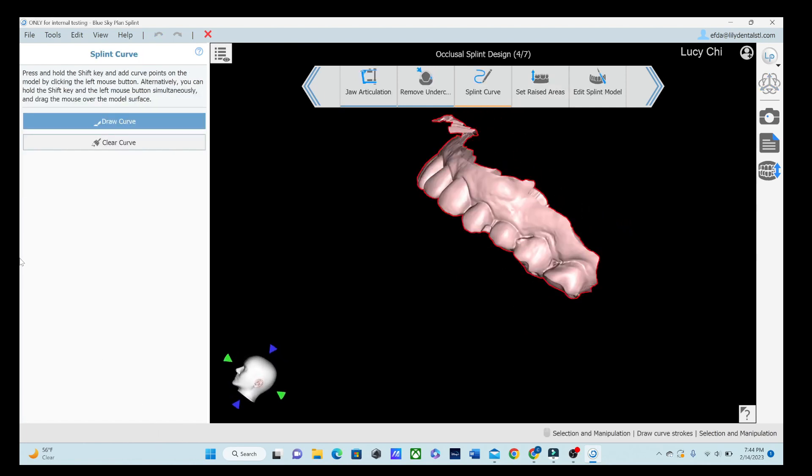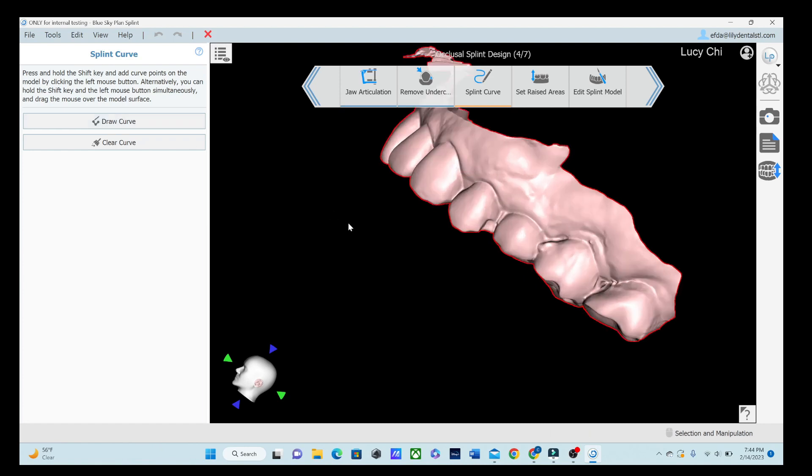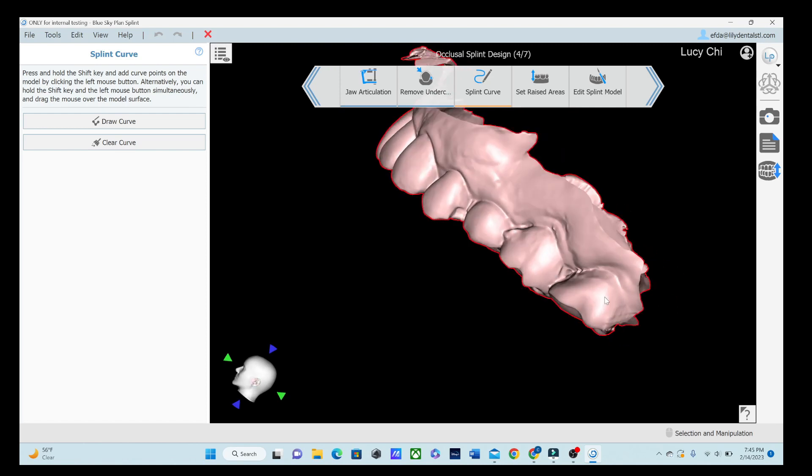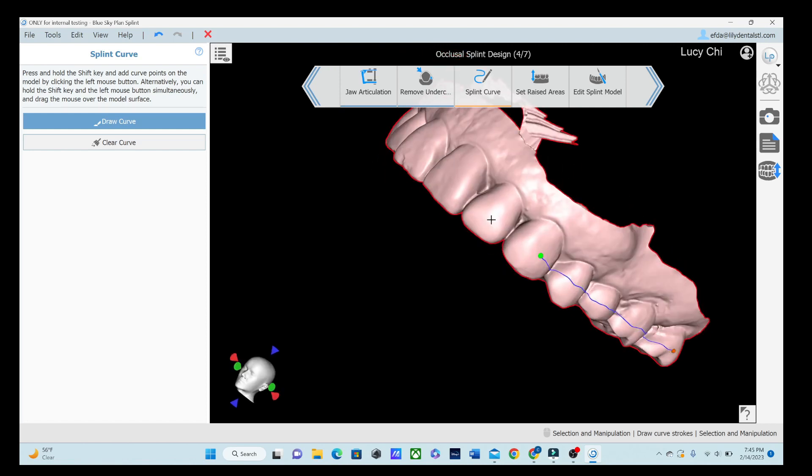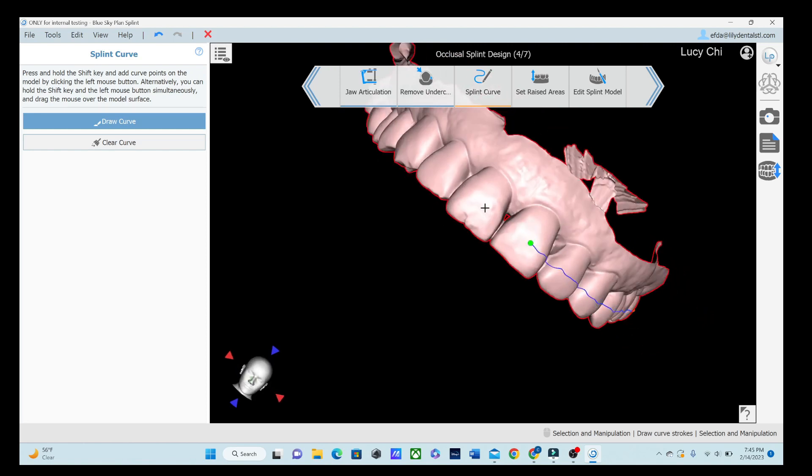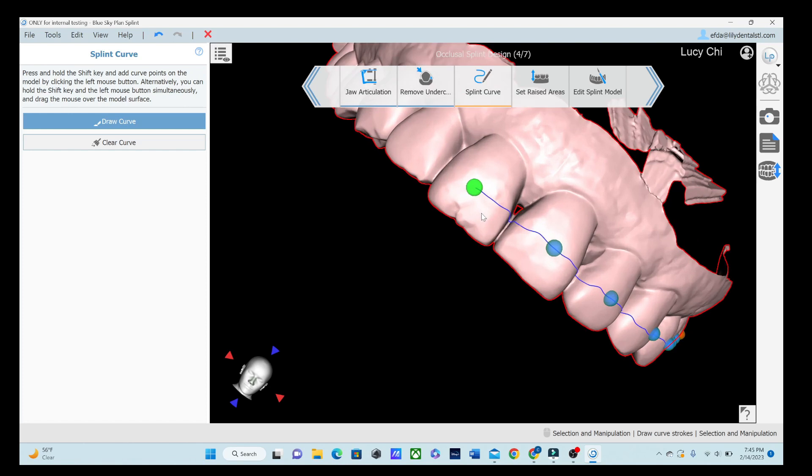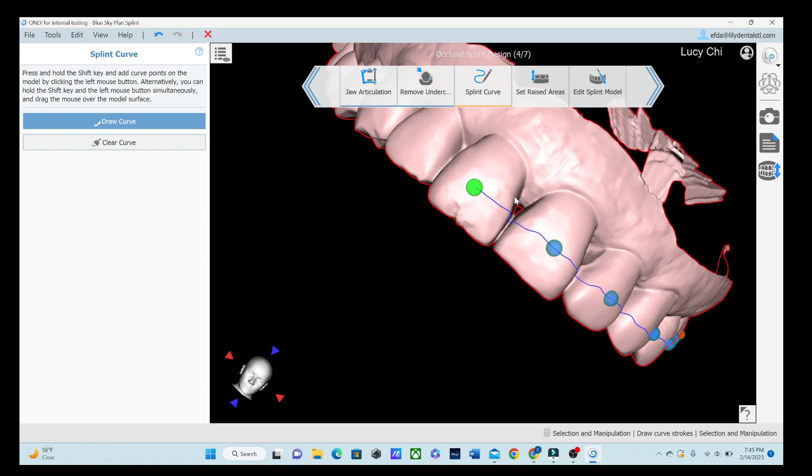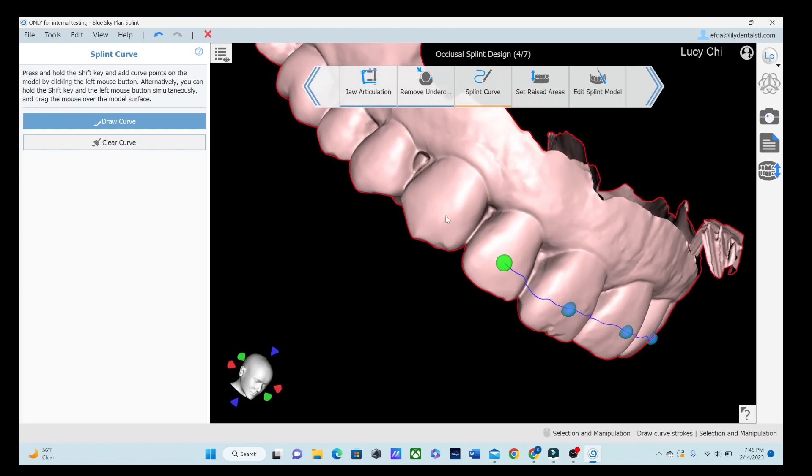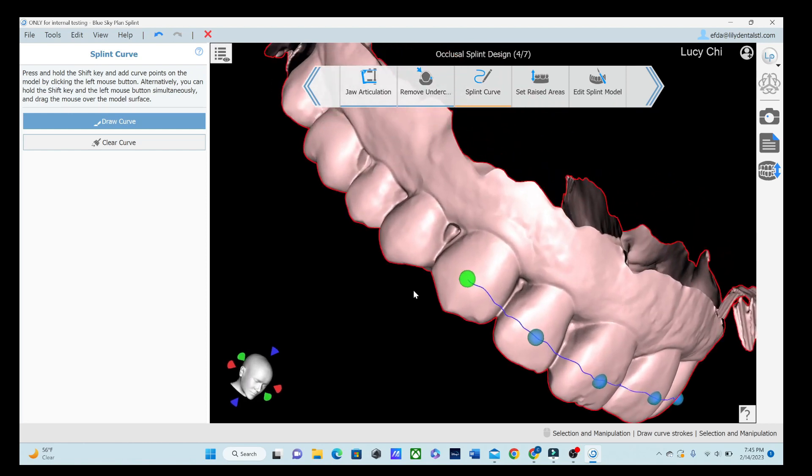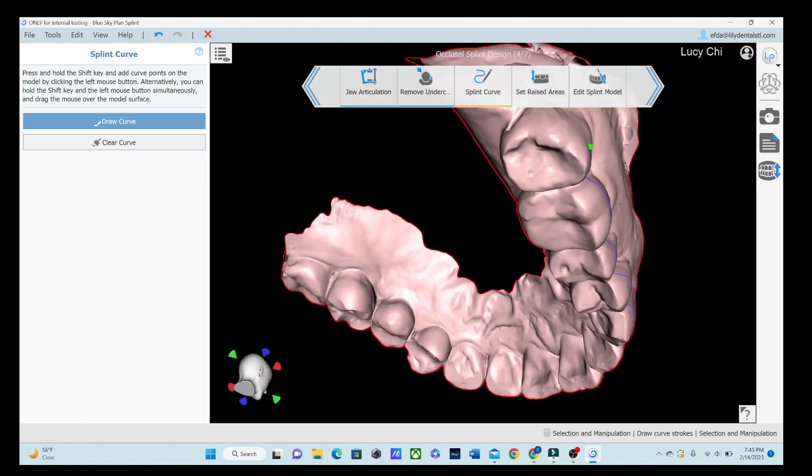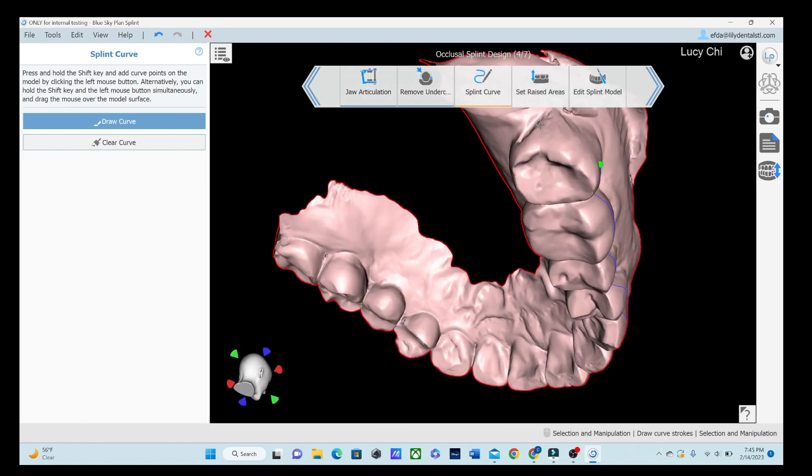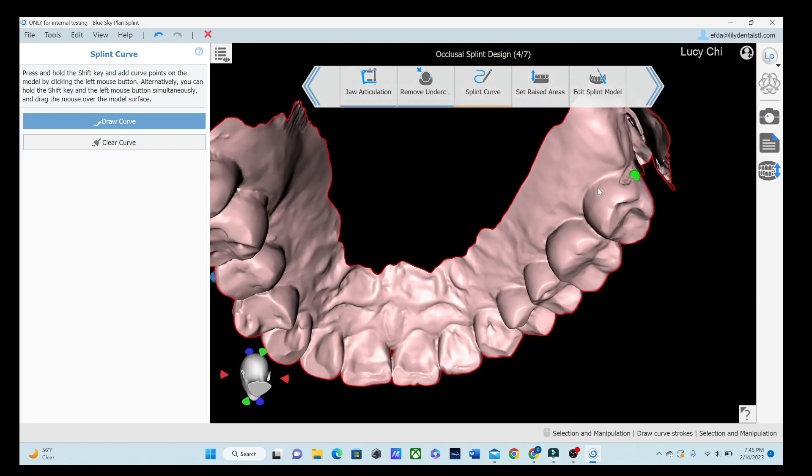So splint curve. Let's draw that curve. You could do them all the way across, only like a third of it. You could do them scalloped, could do them straight across. I really do not think there is a wrong way to do it. And we are going to go ahead and draw that curve, shift and click, or you can shift and draw, but I have kind of, I don't have the best. I'm still a little shaky and I'm not feeling so good because I'm at home sick today. So we are just going to do these dot to dot all the way across. You'll notice I put below that little guy because we don't want to confuse the computer or engage too many undercuts right there. We want to engage more undercuts in the posterior than in the anterior. If we engage just in the posterior and not too much in the anterior, it'll still make it so it is a nice guard, but also make it easy enough for the patient to remove.